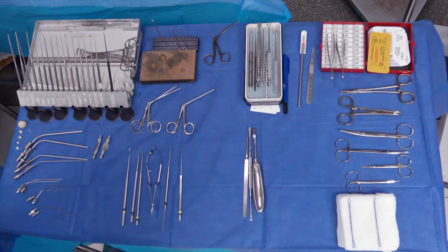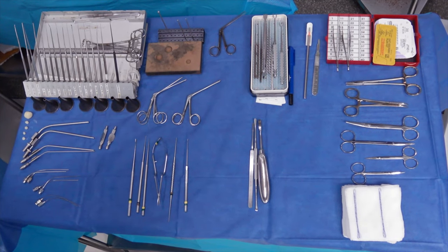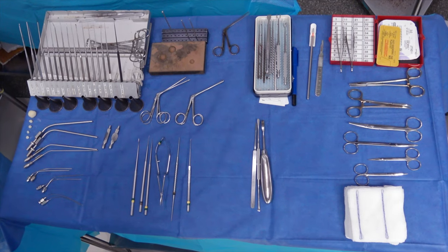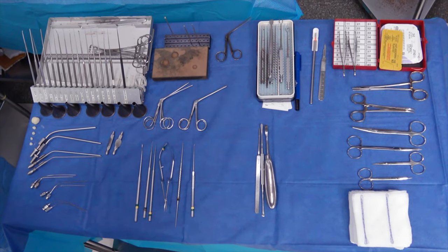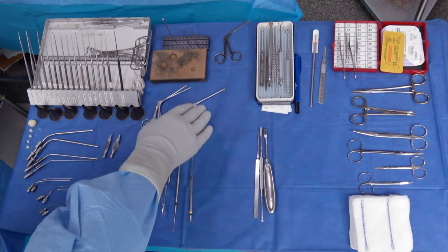Standard for chronic ear, I typically use a five cutter, a three diamond and a two diamond for most ear cases if I'm drilling a mastoid with or without canalplasty. Then we also have our assortment of alligators and cups, both our standard cups and then our micro-cups.